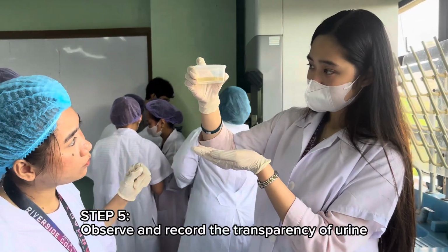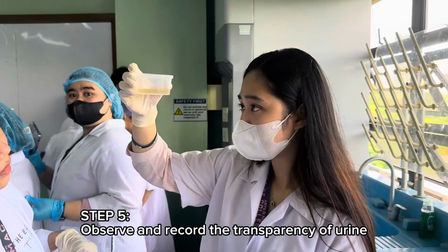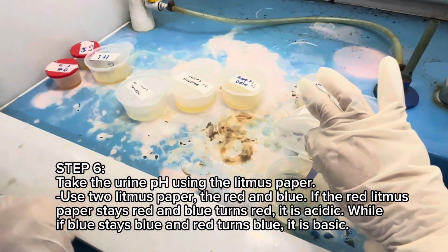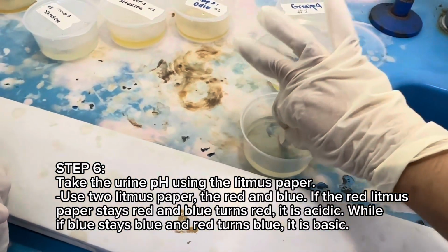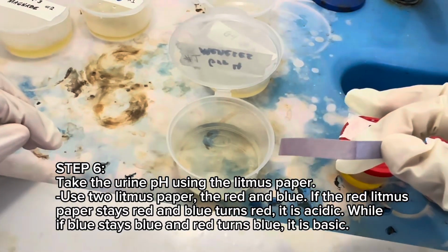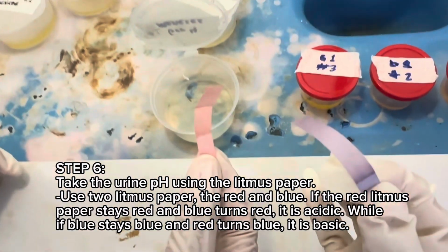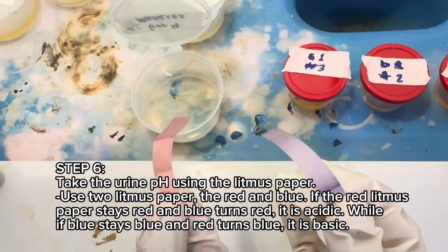Step 5. Observe and record the transparency of urine. Step 6. Take the urine pH using the litmus paper. Use 2 litmus paper, the red and blue. If the red litmus paper stays red and blue turns red, it is acidic, while if blue stays blue and red turns blue, it is basic.